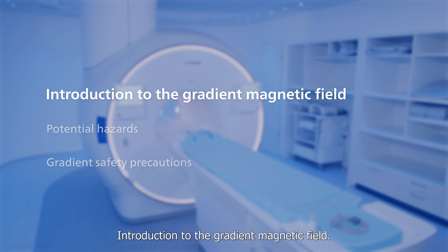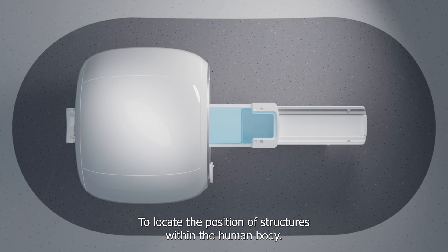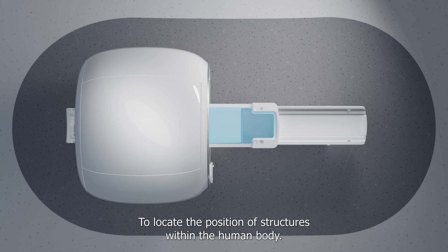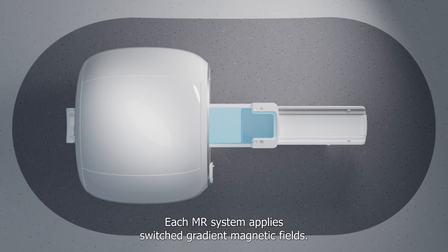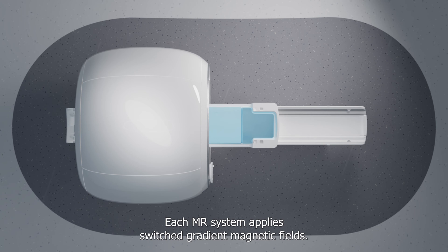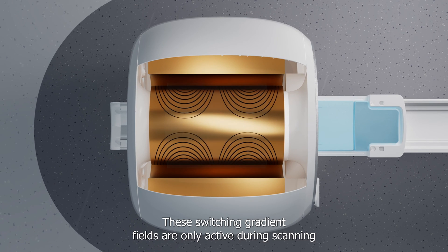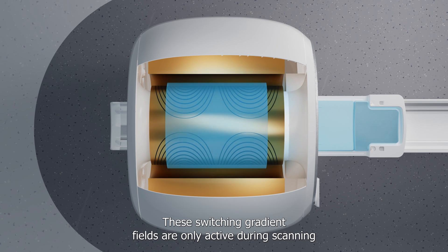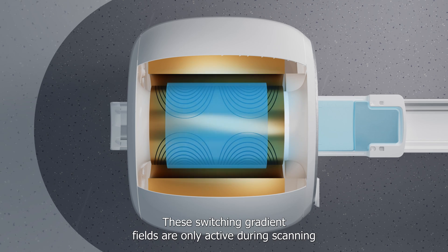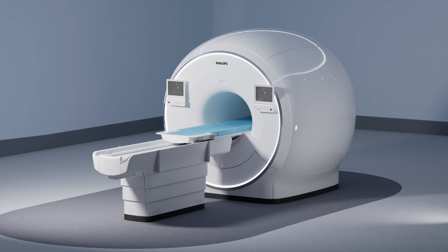Introduction to the gradient magnetic field. To locate the position of structures within the human body, each MR system applies switched gradient magnetic fields. These switching gradient fields are only active during scanning and do not extend outside the magnet.